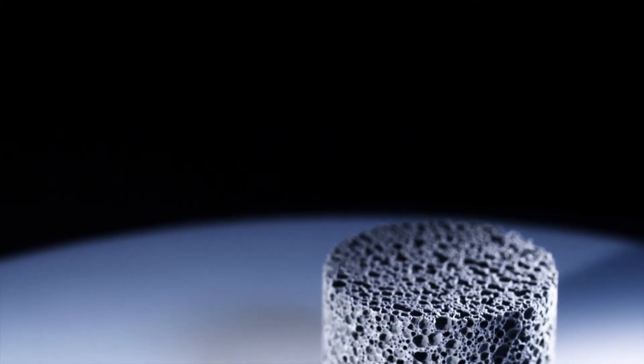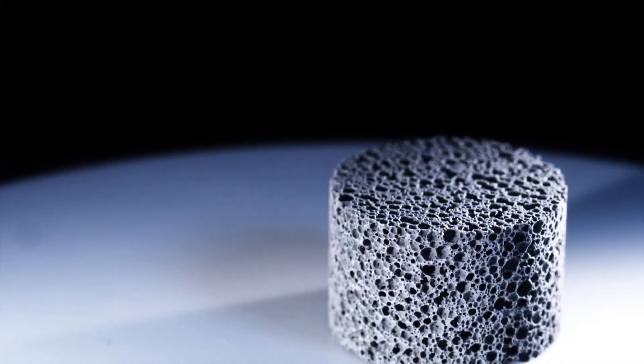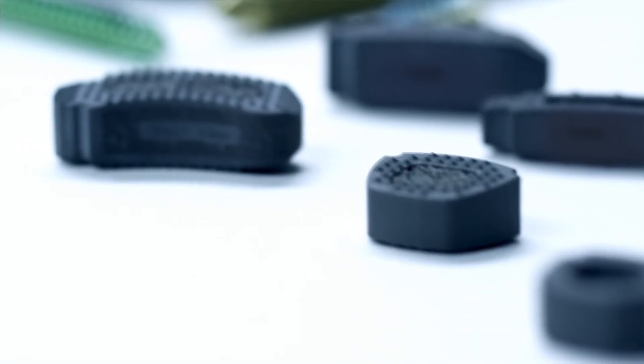Products that we use that need a bearing surface but need two bony ingrowth surfaces so that we could use that material to create what we don't have with the other materials today. That is a strong structural support yet perfectly formed to allow bone to grow right into and through it.